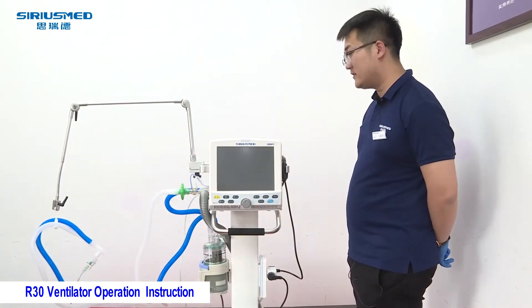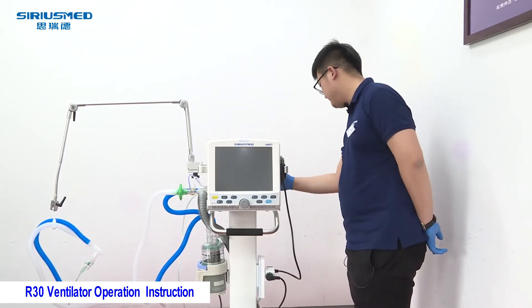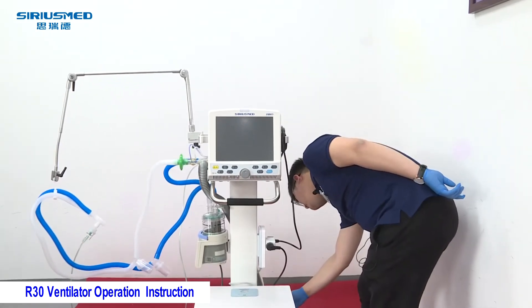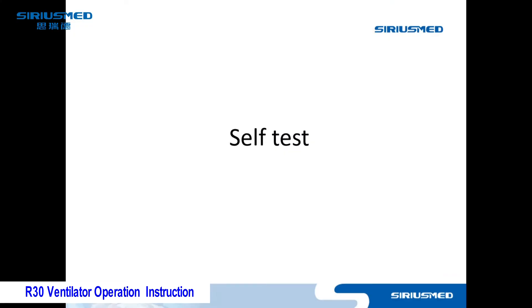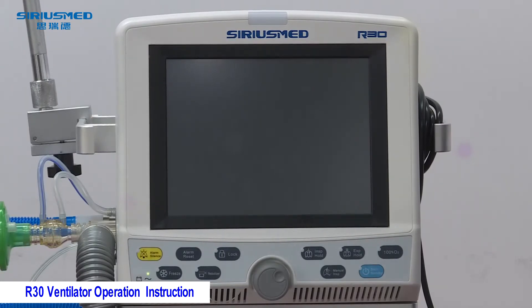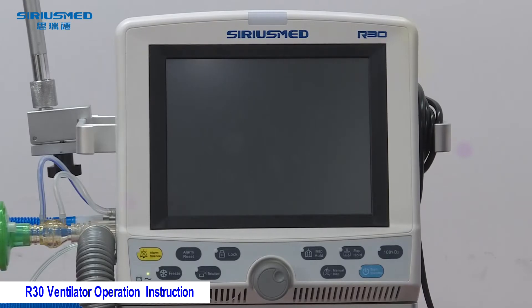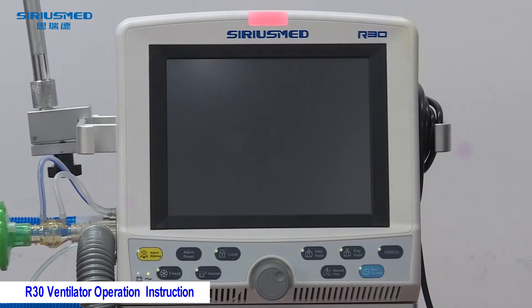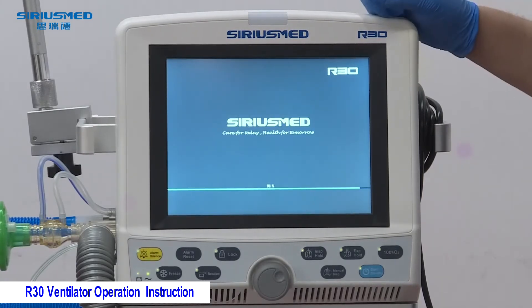After installing all the components we can use the machine. First we need to turn on the machine — the switch is at the back. After connecting the tube, we can use the machine with the patient. First turn on the switch at the back.